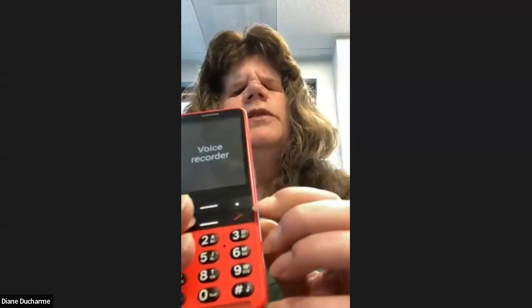There's also a stopwatch. Translator converts English to another language and vice versa. Unit converter — for example, centimeters to inches. Voice recorder allows you to record in your own voice — you can take a note, record a meeting, or record a phone call. And then there's the weather.